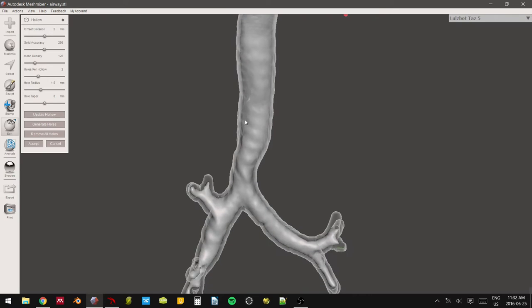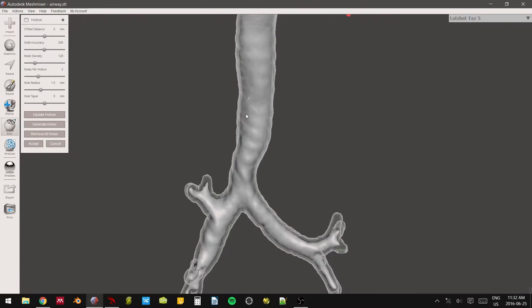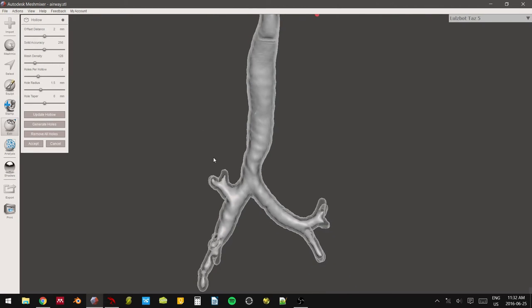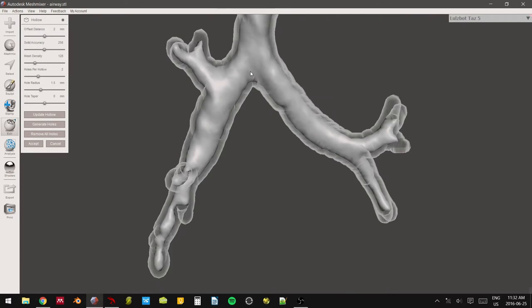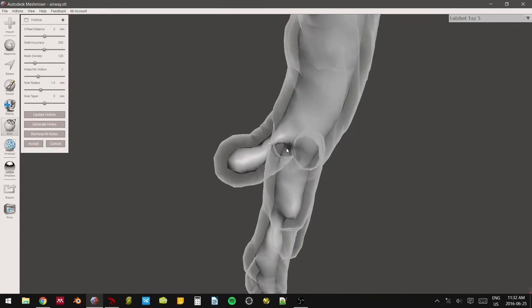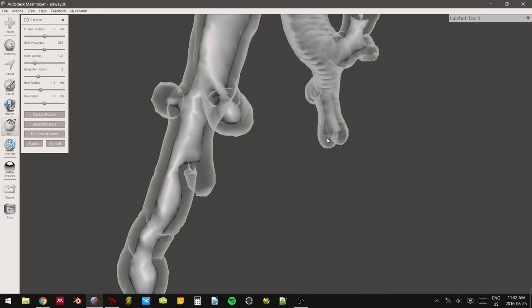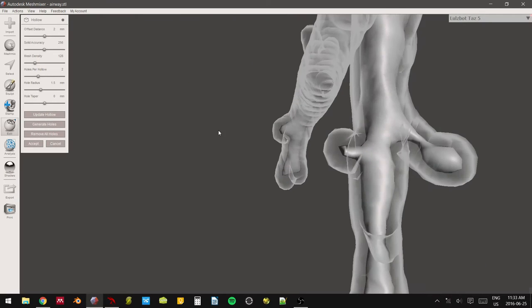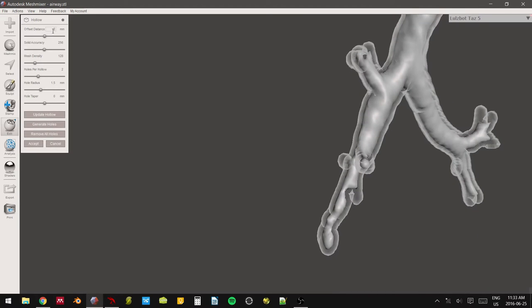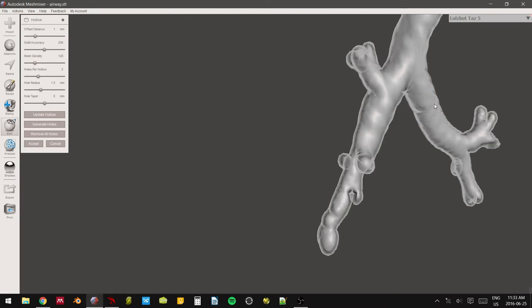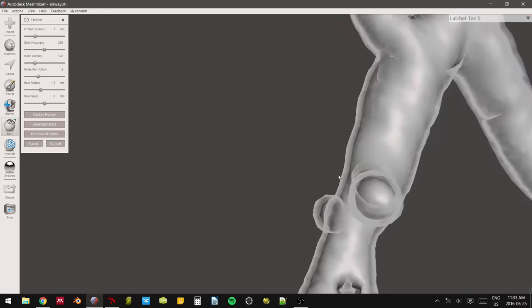This is the ideal scenario, because the internal negative space is going to be one-to-one to that of what you pulled out from CT. If you find that you are missing a couple of branches, like this one's really close to being not segmented out or contiguous with the main branch, like it's really thin. If you find that that's the case, you can turn the offset distance down. So for example, if I turn down the one millimeter and we hit update hollow, you're going to be taking out a lot more from the inside. But as you can see, your different branches are going to be more defined.